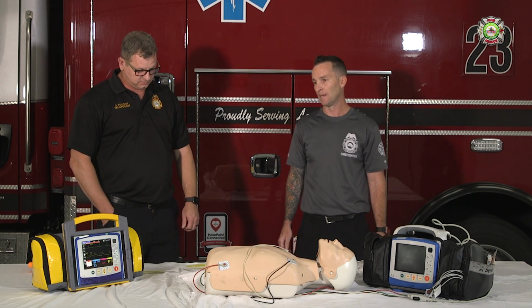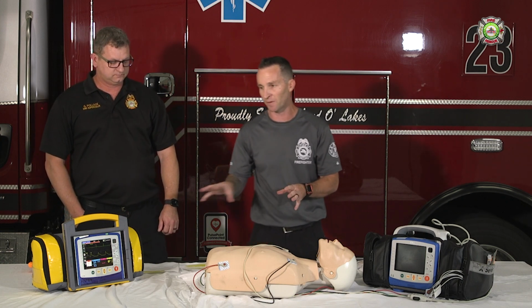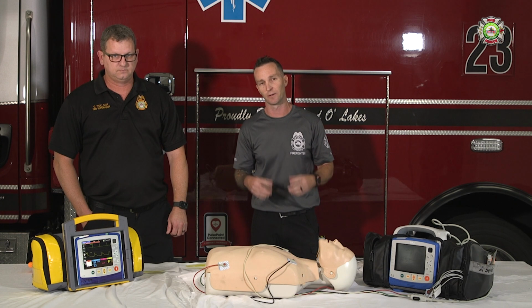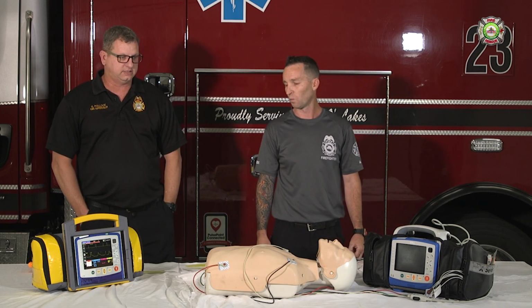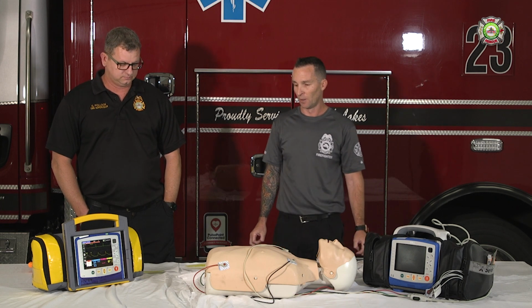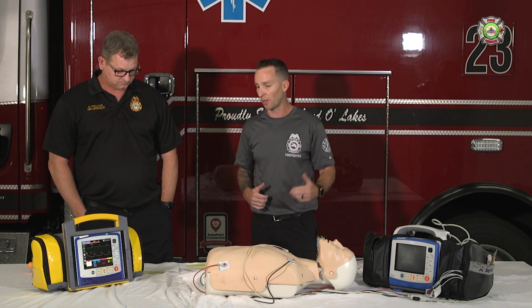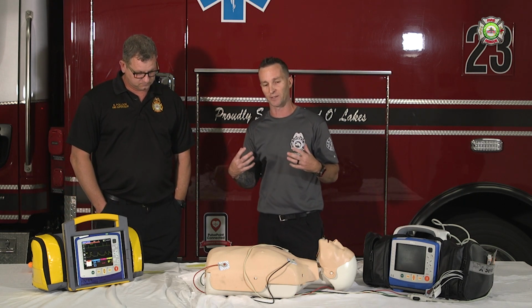When you determine a patient needs to be paced, there's two types of pacing. There's going to be demand and fixed. We're going to be focusing on demand. Yeah, do not try fixed pacing. That is not something we do pre-hospital. So today we're just going to go through the pacing process with the monitor, go through the basic steps. Just a reminder, it's a review of the pacing process.